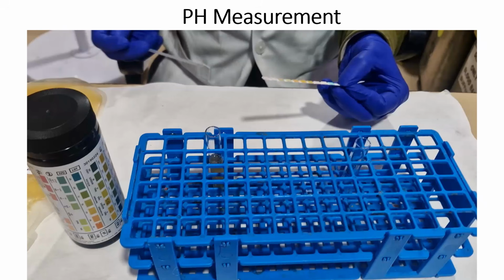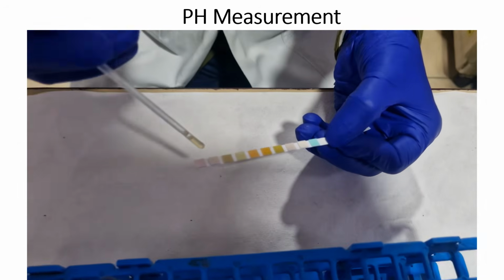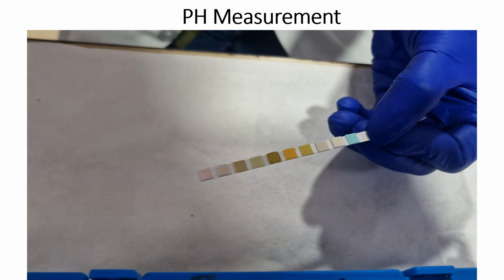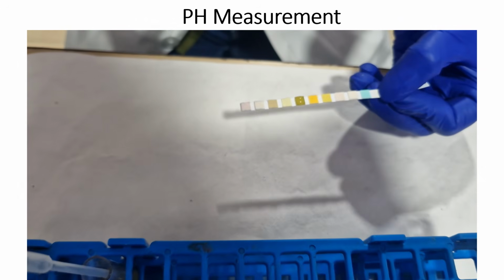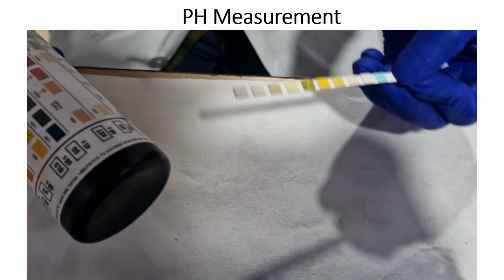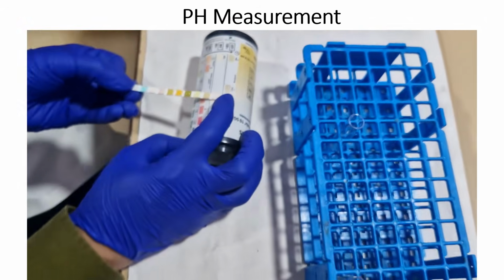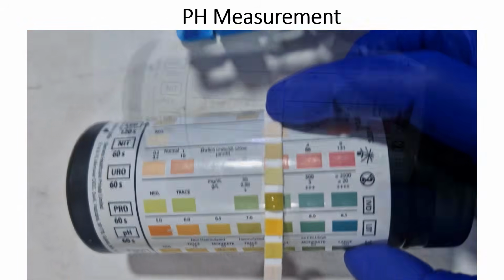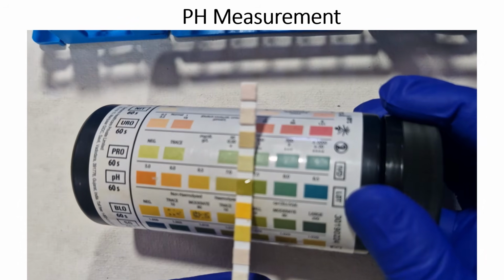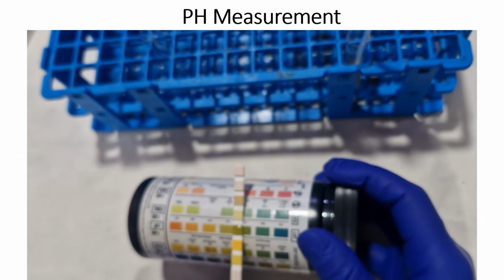For checking the pH of the sample, we will take one drop and place it on the pH indicator strip. Now we will match it with the color coding as given to see if the platelet QC is fulfilled or not, which is pH more than 6. As we can see here, the pH of this platelet sample is in the range of 7 to 7.5.